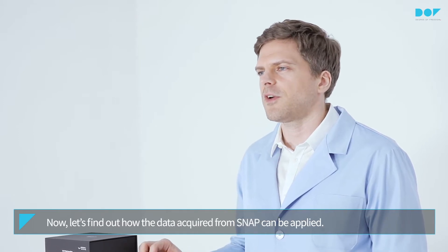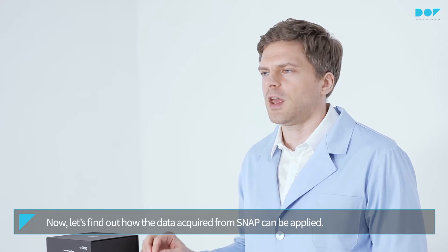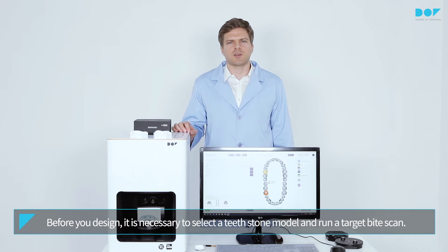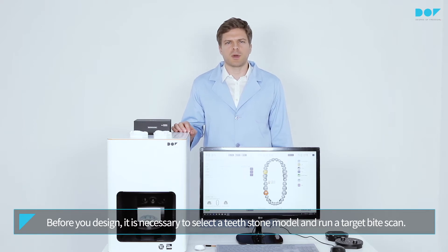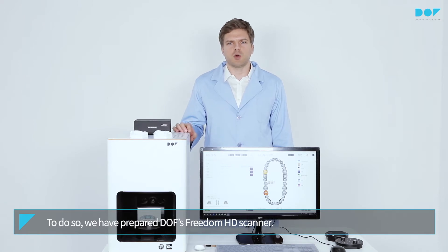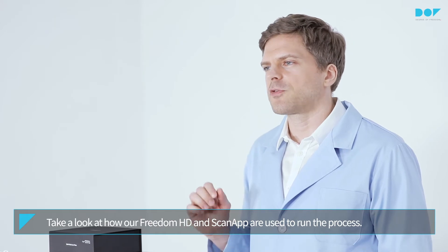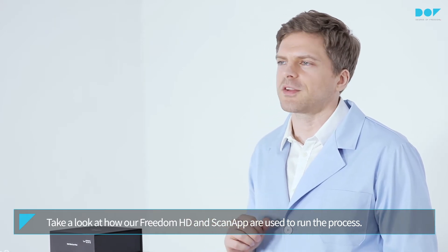Now let's find out how the data can be acquired from SNAP and applied. Before your design, it is necessary to select a tooth stone model and run a target bite scan. To do so, we have prepared DOF's Freedom HD scanner. Take a look at how our Freedom HD and ScanApp are used to run the process.